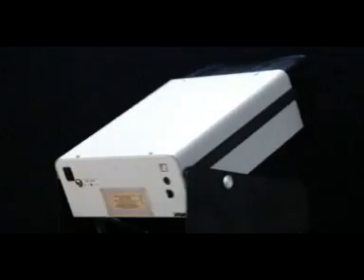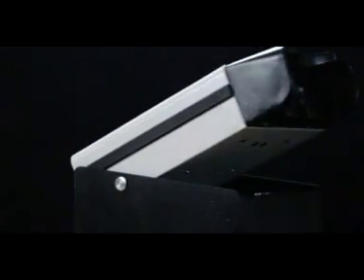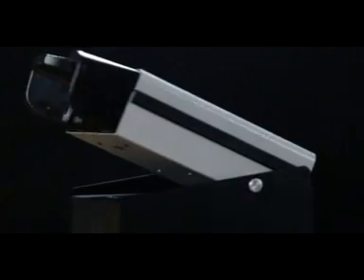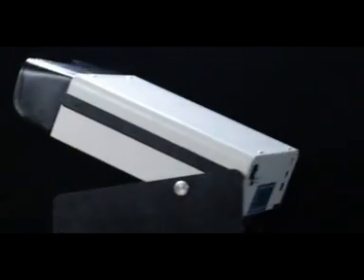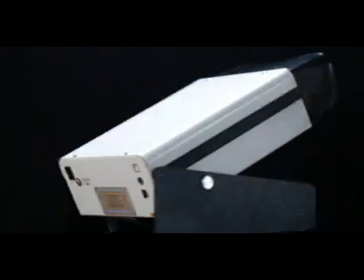The Keystone Vision testing machines are extremely user-friendly, but you need to ensure that you follow these instructions carefully for all aspects of using the machine, including setting up the equipment.